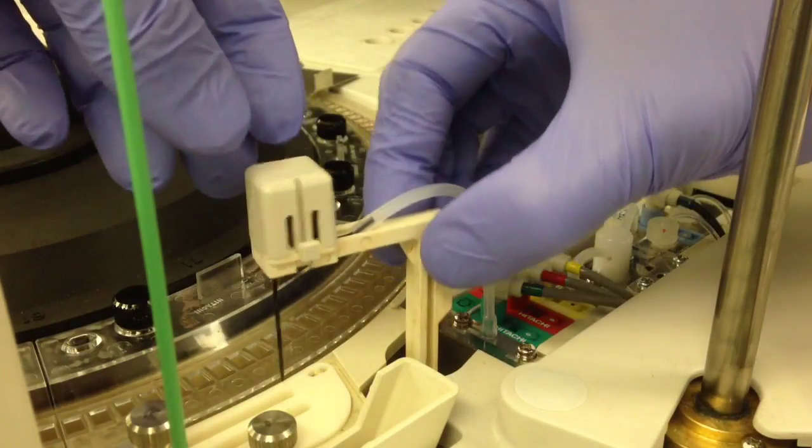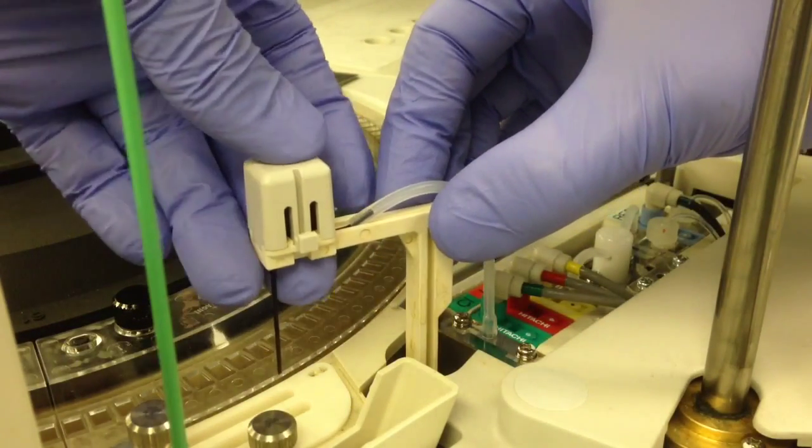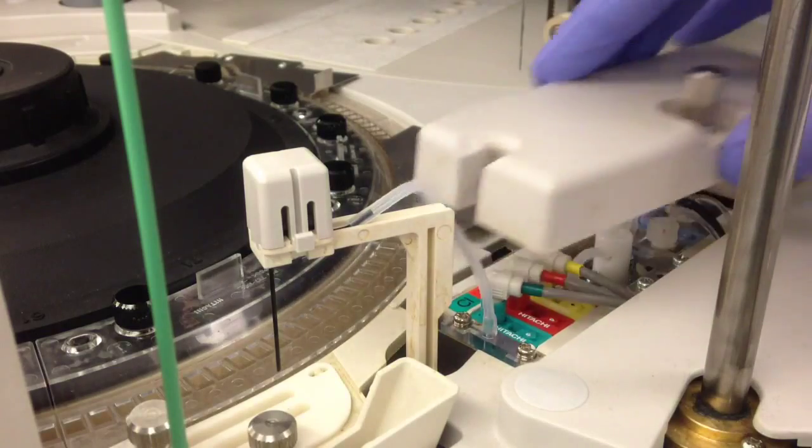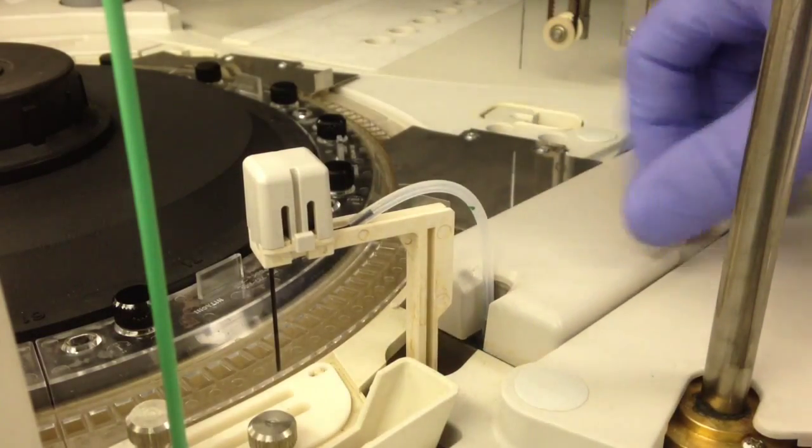Once you get all the tubing in, you're all set. Just make sure everything's seated correctly, which I did just there. And then reattach the ISE cover.